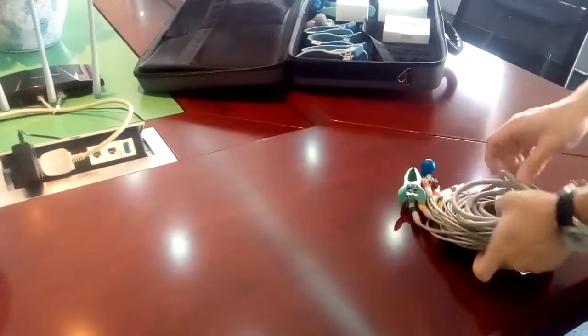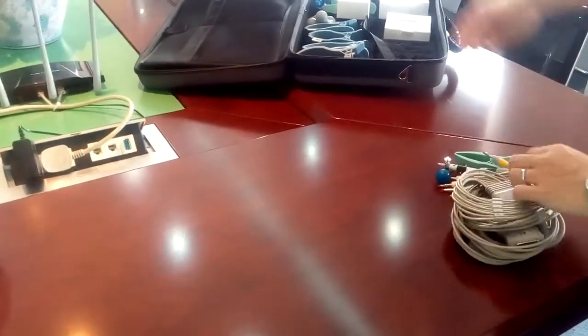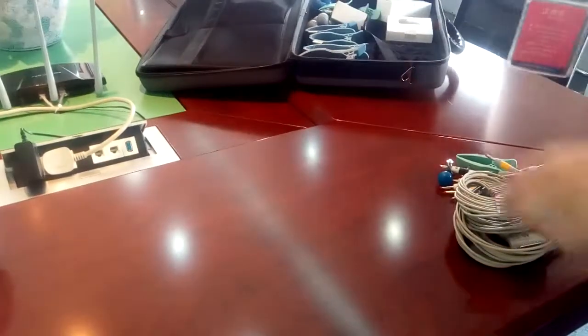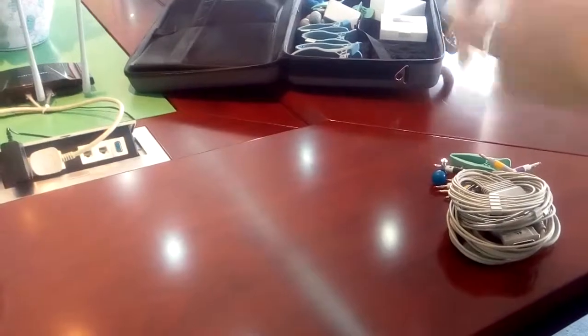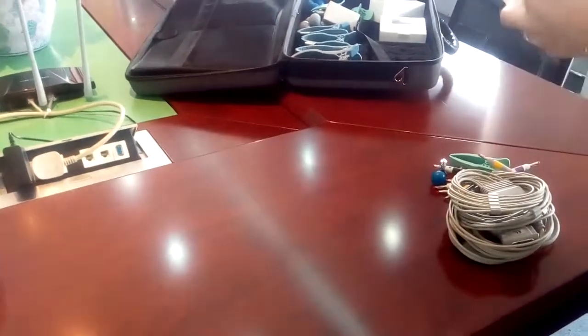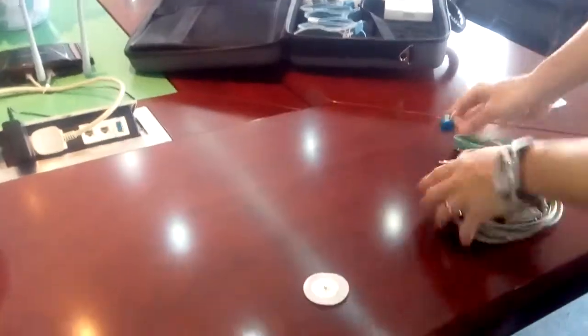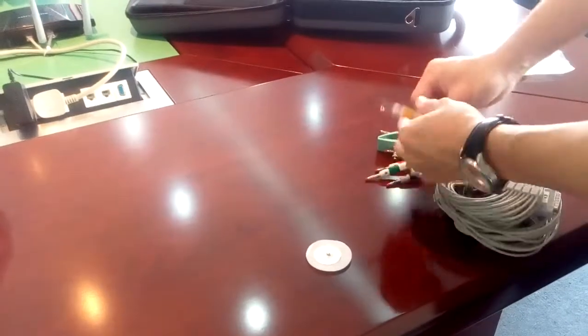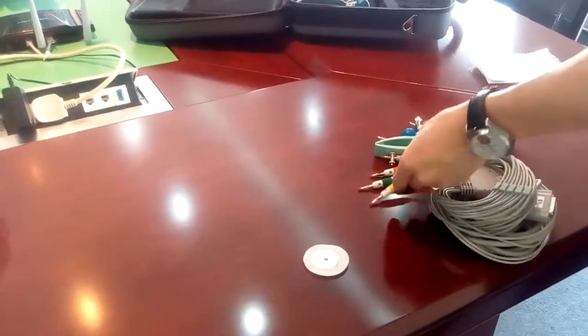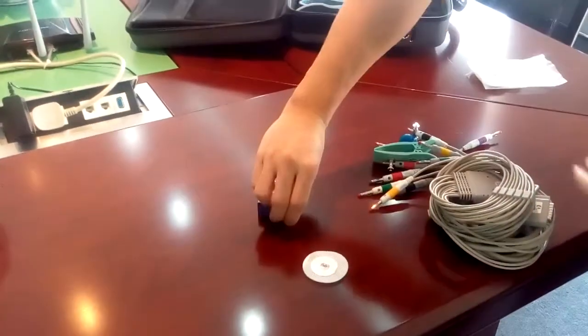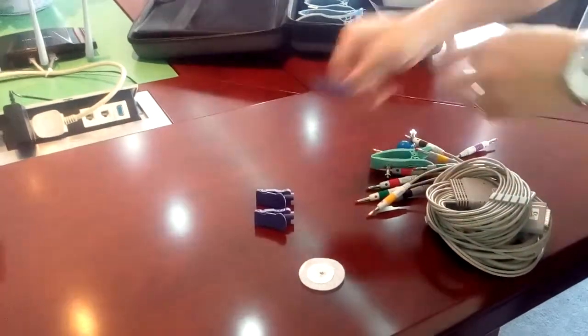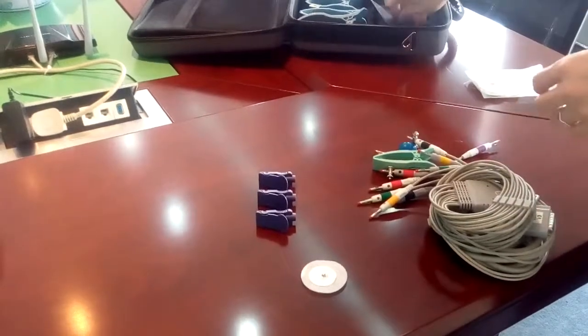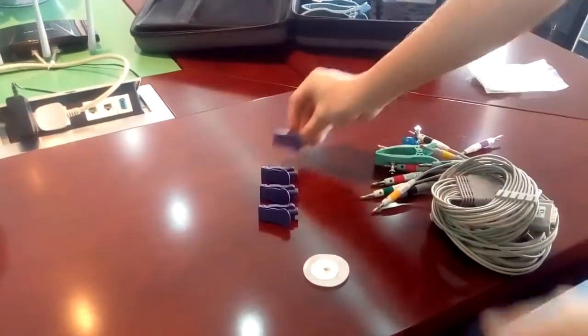But you have to use different electrodes, disposable electrodes. And also we need adapters. We call this universal adapters.